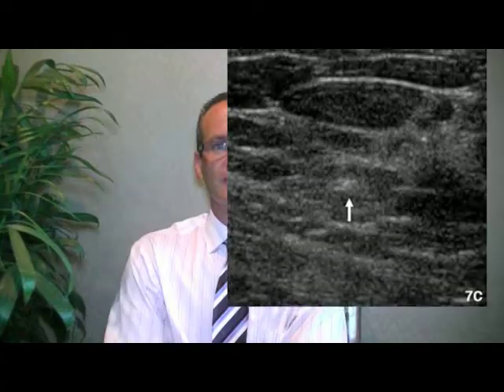Following the biopsy, a small marking clip, usually composed of stainless steel or titanium, is placed in the region of the biopsy. This marking clip remains in the breast tissue following the procedure. If you require any additional surgical procedures based upon the results of the biopsy, this clip will be used by the surgeon to guide him or her to the region.